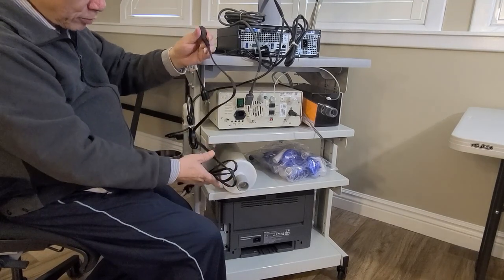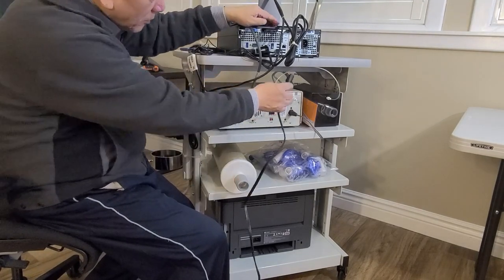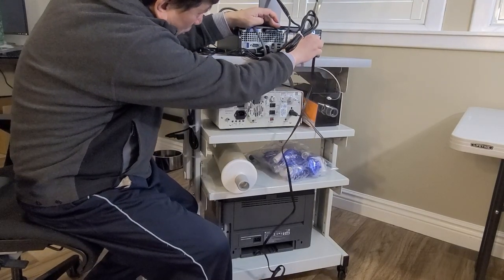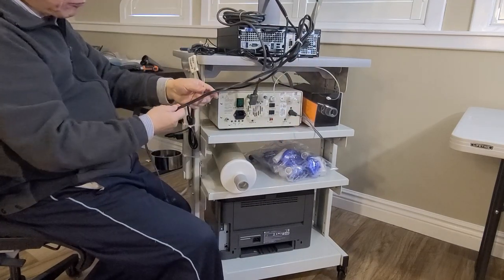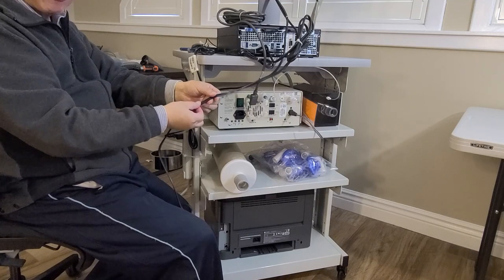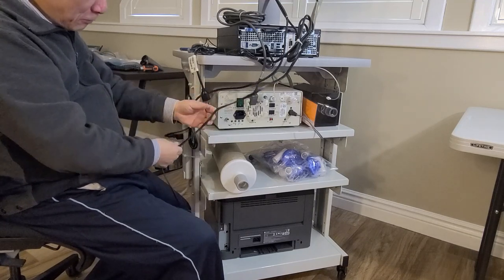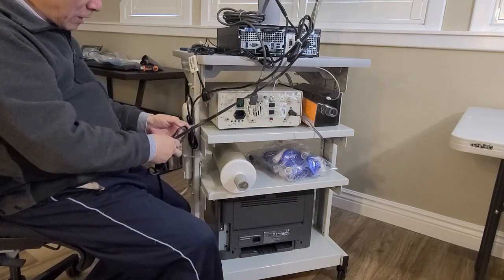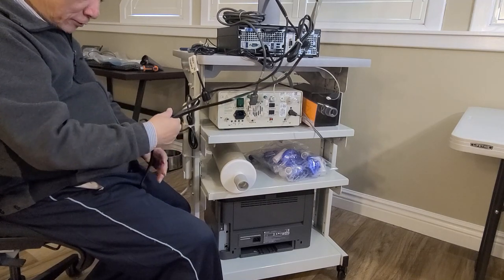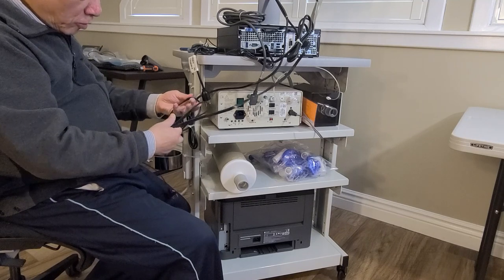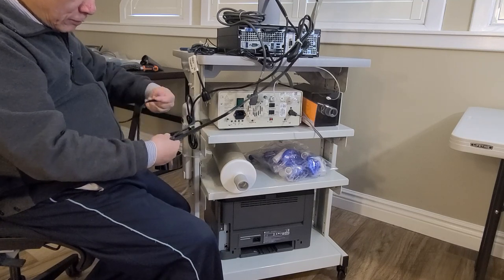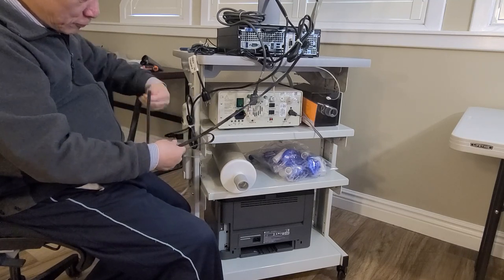Now we put the power cord of the computer. How do you know that's the power cord of the computer? It's one and only one flat power cord, even though function-wise it doesn't matter. But I like to give the computer power cord to the computer so we won't be confused in the future.